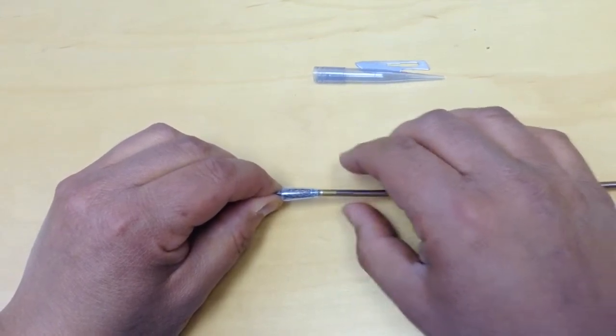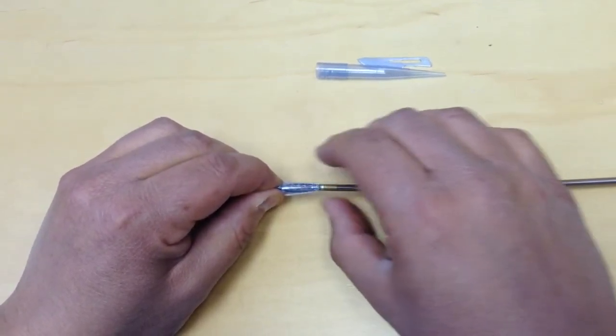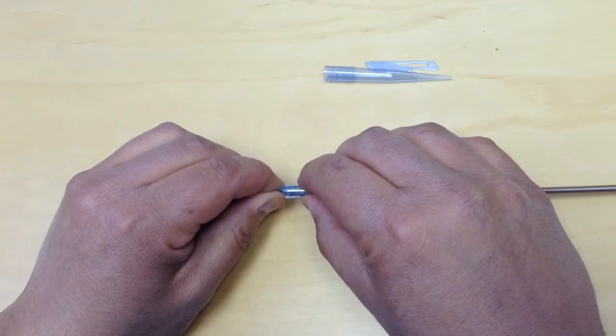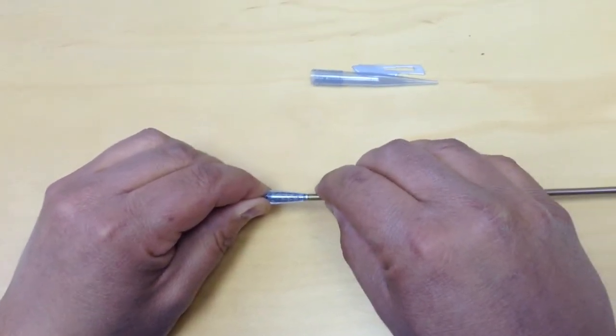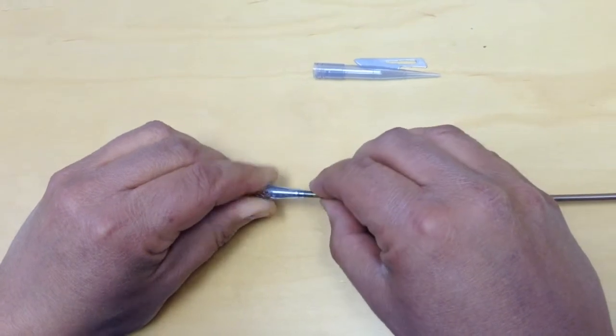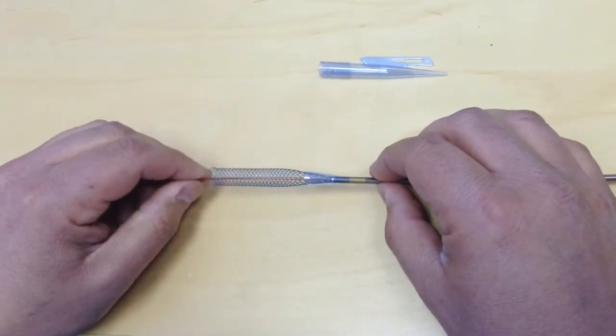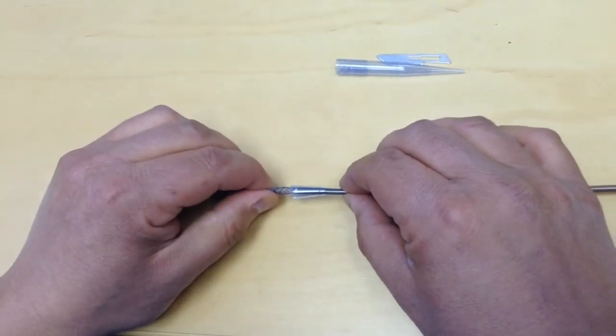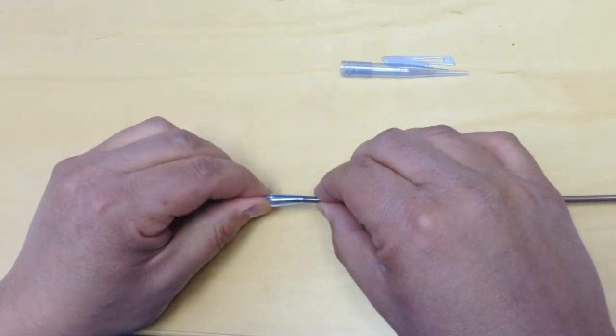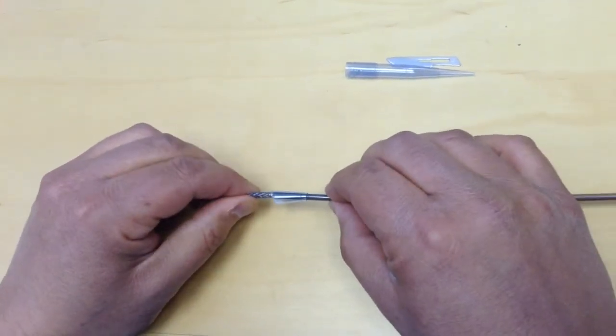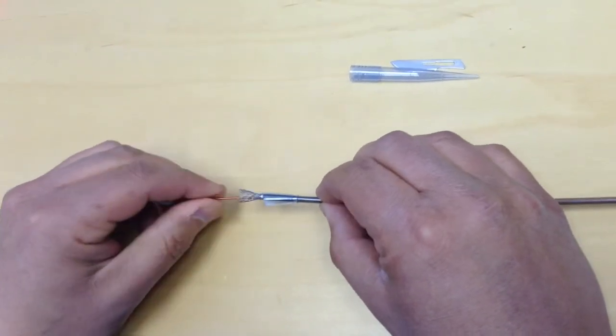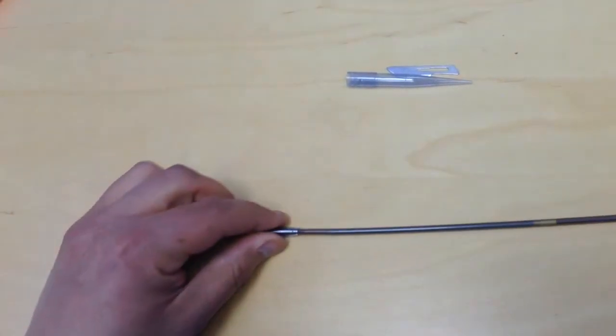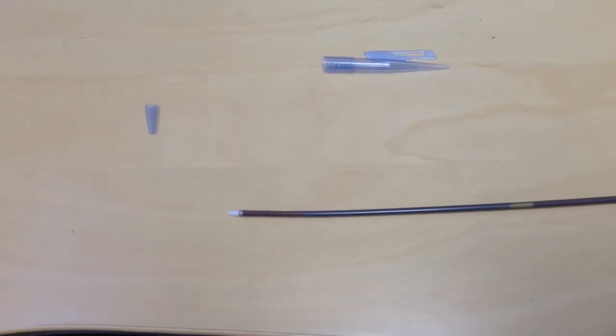While holding the stent, you start feeding. That's it. You've got your stent back inside the delivery catheter.